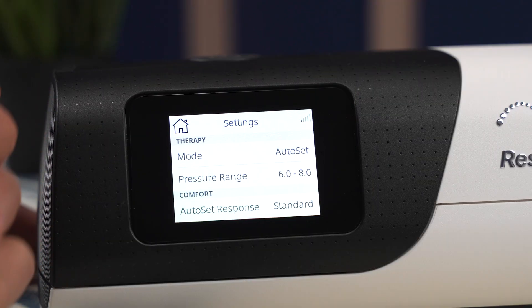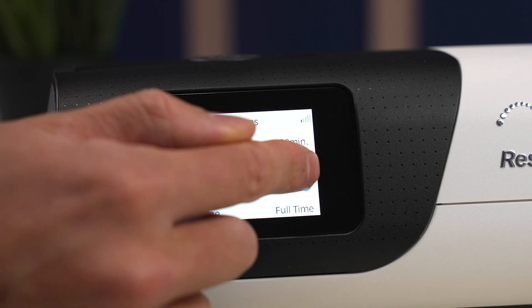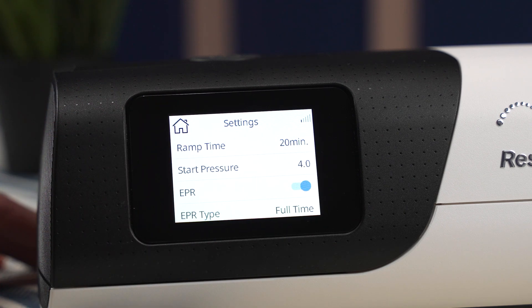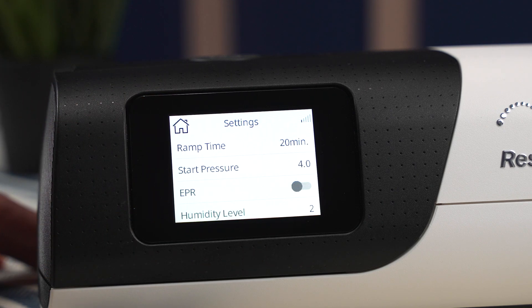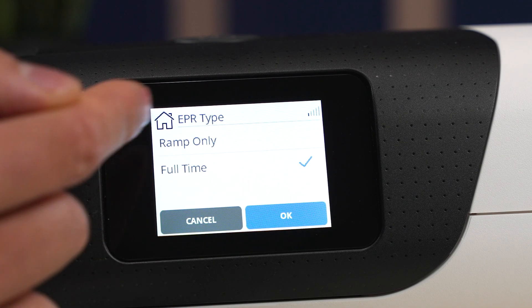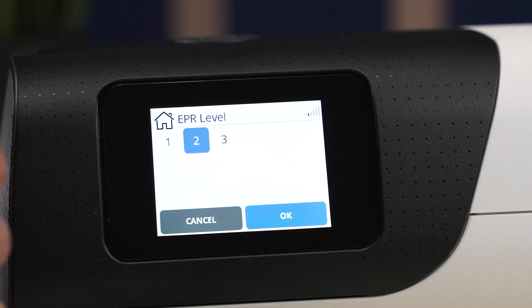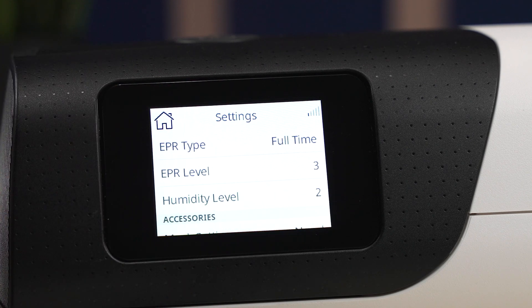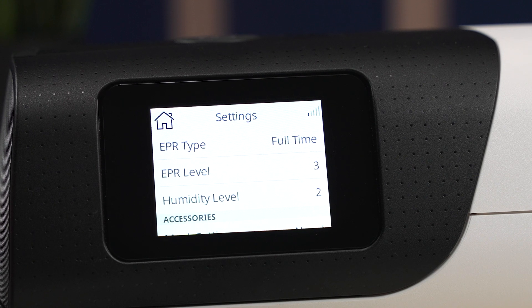Then we're going to click OK. There's one last setting in terms of pressure we can look at — that's EPR. EPR is turned on here but you can turn it off and on just like that. EPR is your expiratory pressure relief, so that's the pressure when you exhale. If it's turned off and your pressure is at 10, your exhale pressure will also be at 10. But if you turn it on, we can see the EPR type and the EPR level. So if our EPR level is a 3 and our typical CPAP pressure is a 10, now our exhaling pressure is a 7, so it's a little bit easier to exhale because there's a little less pressure.